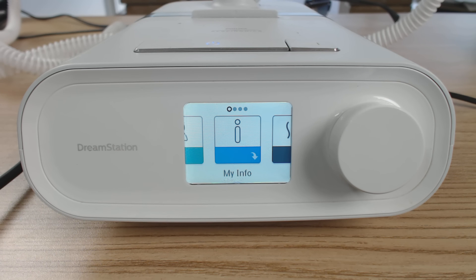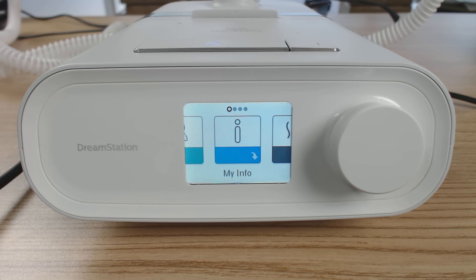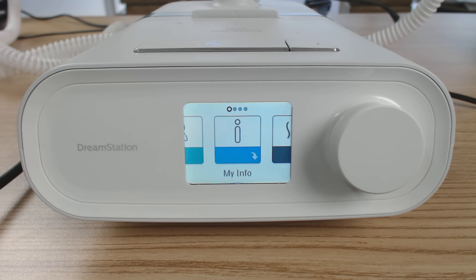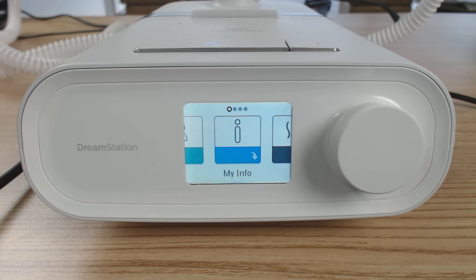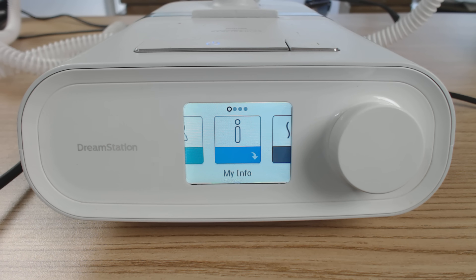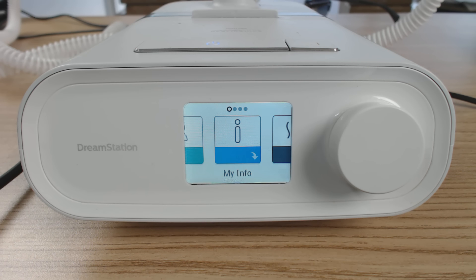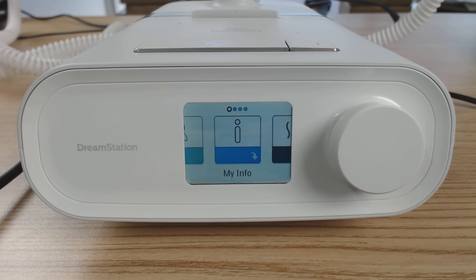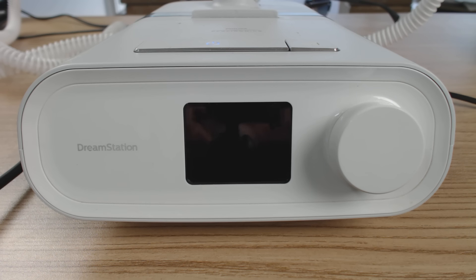G'day guys, Nick here from CPAP Reviews. Welcome to part three of our three-part series on the Philips Respironics DreamStation machine. Part one, we looked at general setup. Part two, we looked at patient menu. And part three, we're going to dig a little bit deeper and go into the clinical menu.